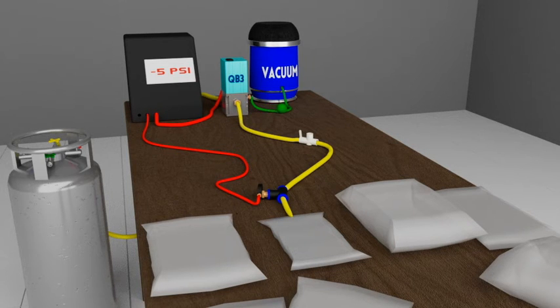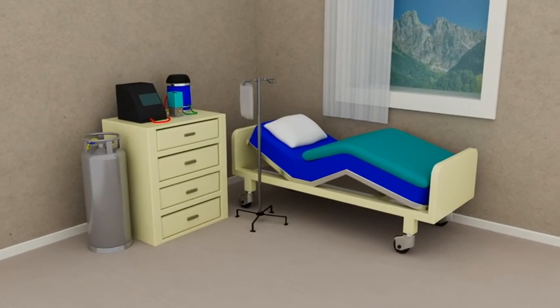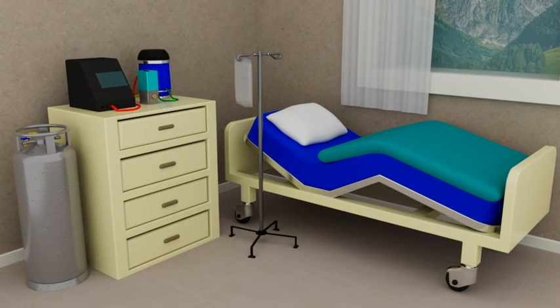The bag is filled with the required fluid. This process provides a safe, effective experience for the patient.